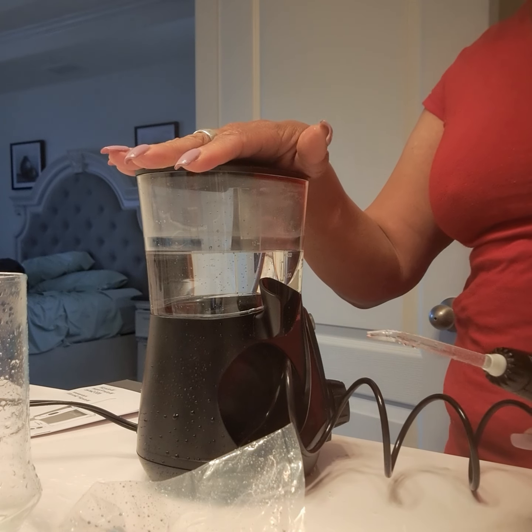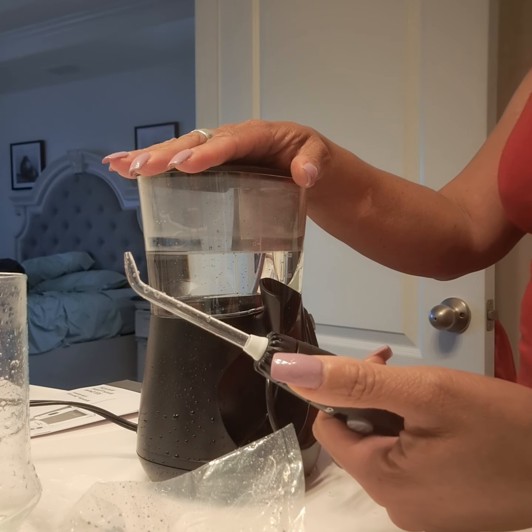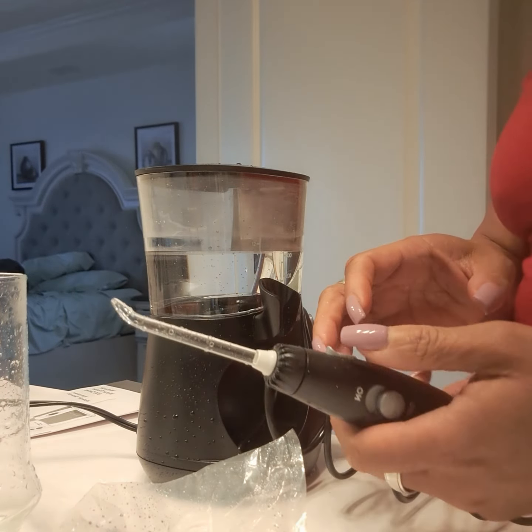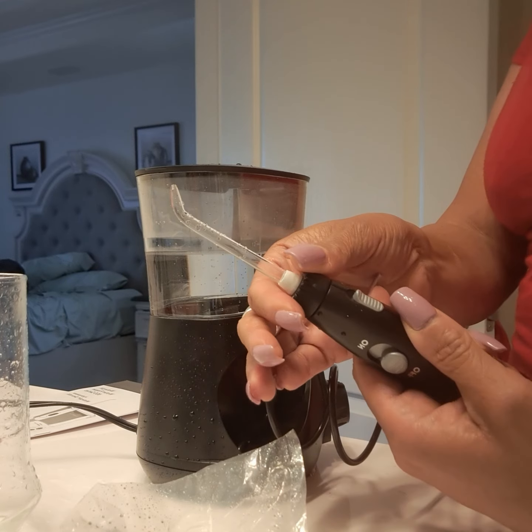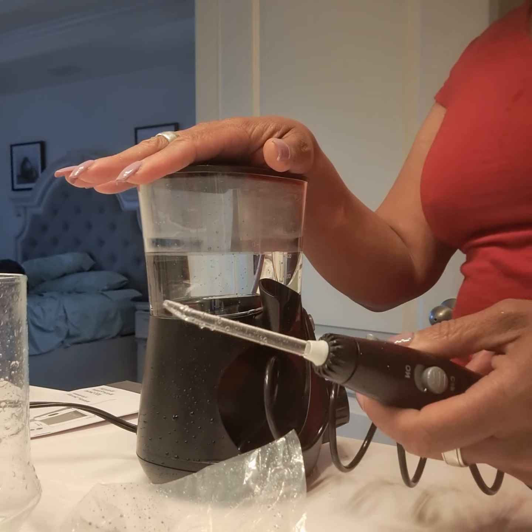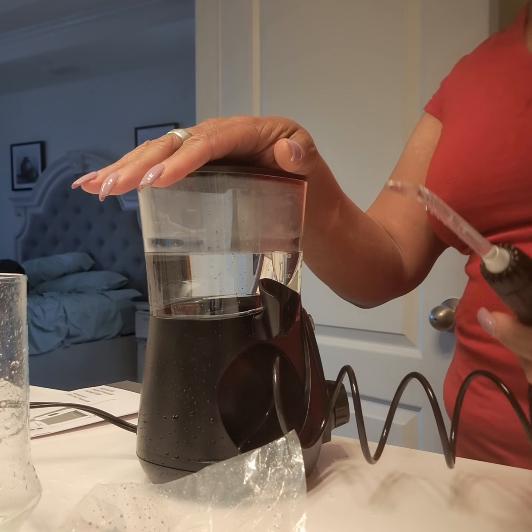This little doohickey isn't bad. What I did was I was pressing this button here and it was lifting this up, causing water to go everywhere. So I didn't do that the next time, and it stays intact. It actually feels kind of good going through your teeth, so if you need a water pick and somebody suggests you get one, this isn't a bad one.